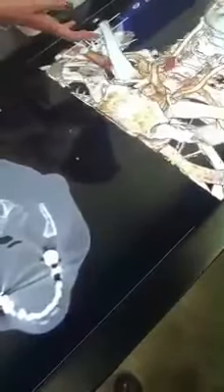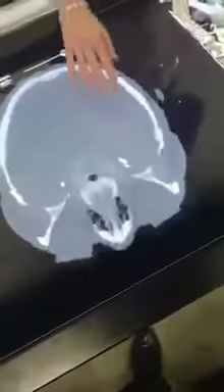What's most interesting to me is you can load in your own patient CT or MRI scan, and from there you can get a 3D model of what you see. So here we have a post-operative scan of a patient with a brain aneurysm, and this is the actual CT that was provided. You can go ahead and slide through the CT and see exactly where the clips were placed. If I go down here, it'll show where it is.